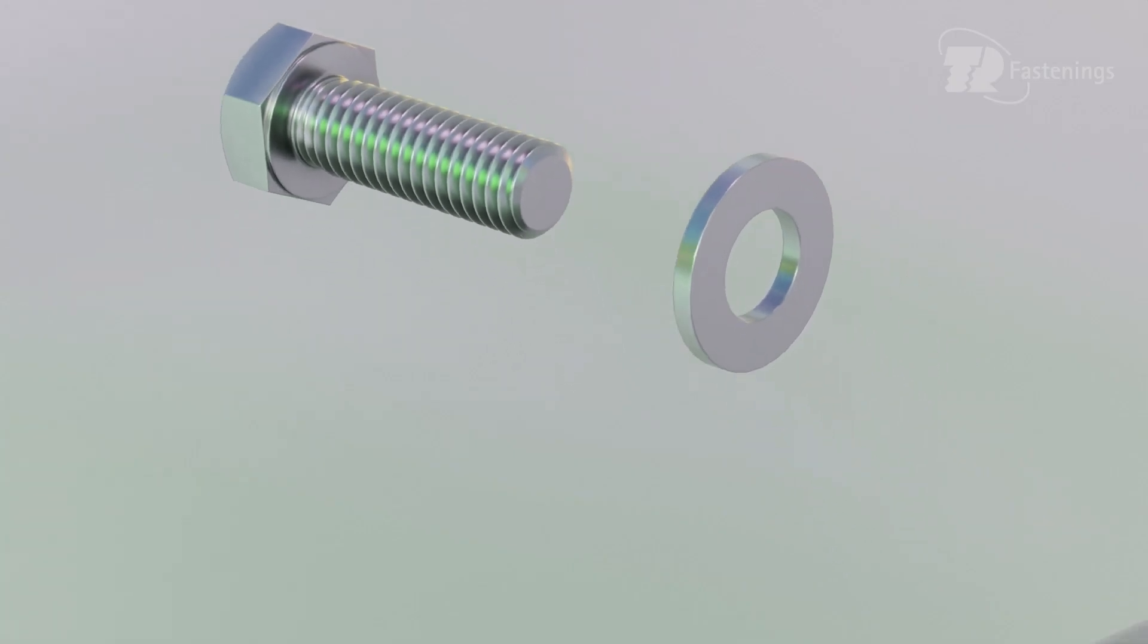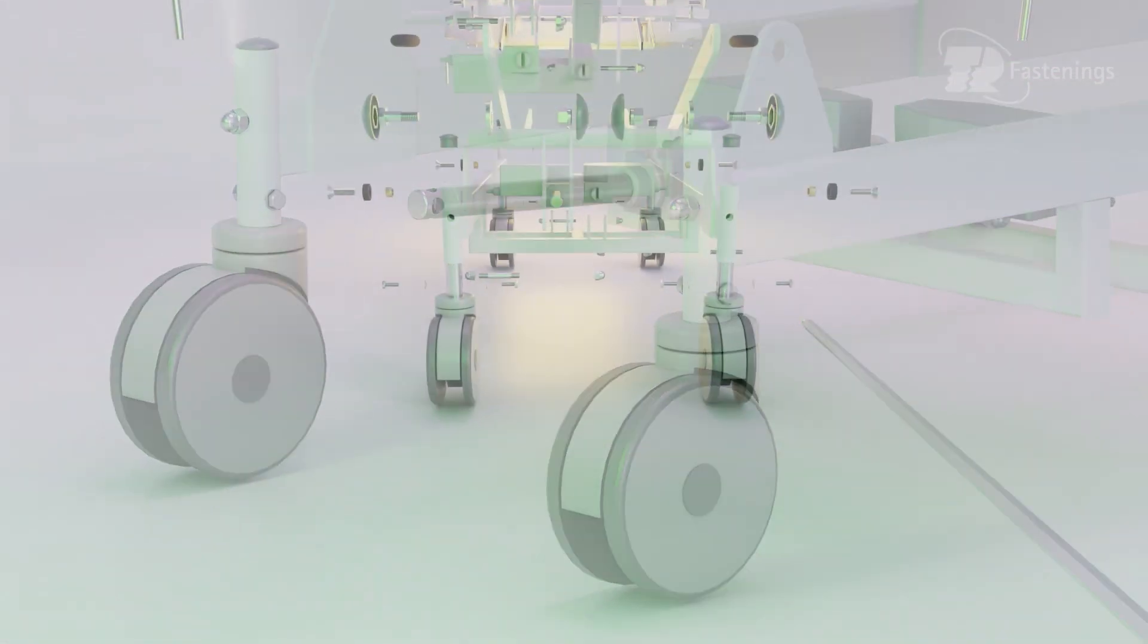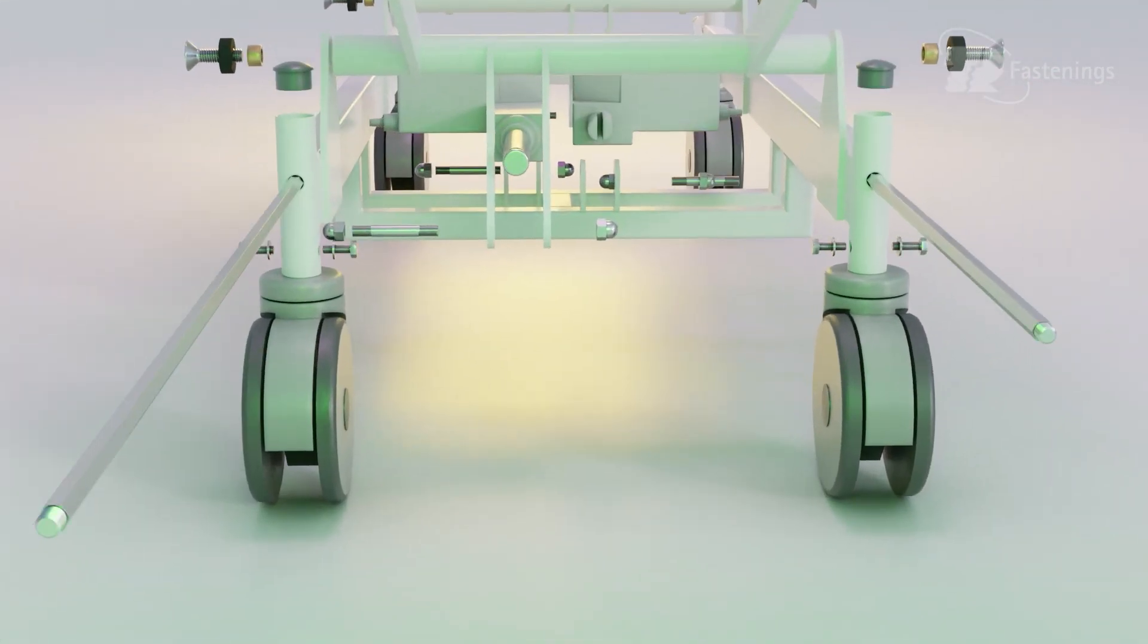Manufacturing hospital furniture requires careful design and construction to ensure that the furniture meets the specific needs of healthcare facilities as outlined by the Department of Health.